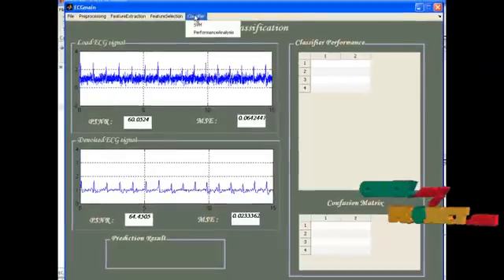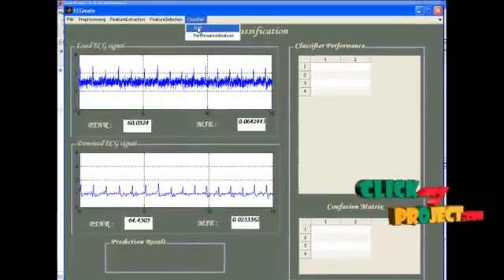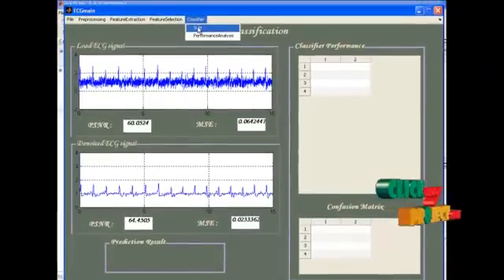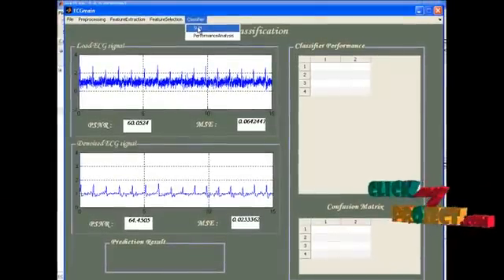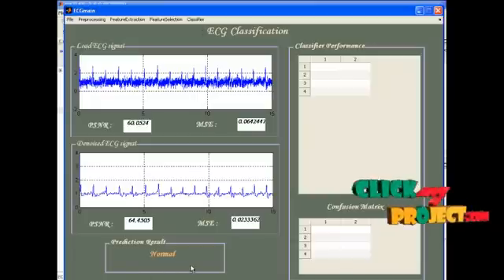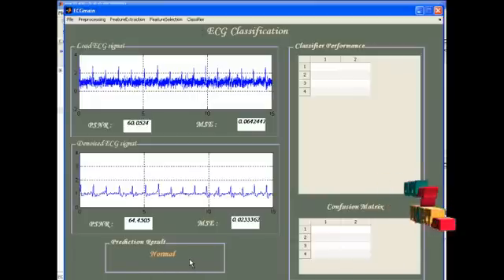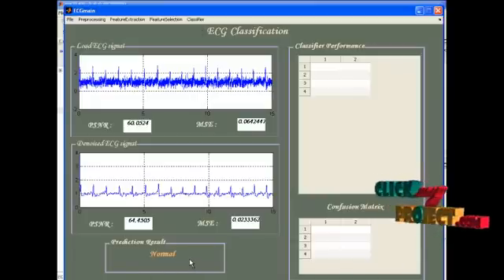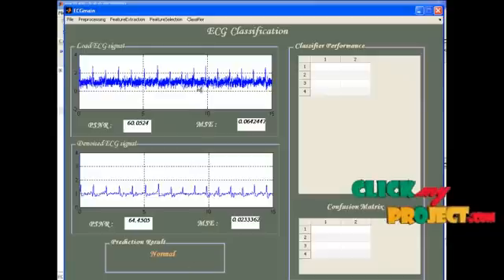Next, we are going to classify the input ECG signal. Select this option SVM under classifier. It is predicted as normal. This ECG signal is taken from a normal patient only.